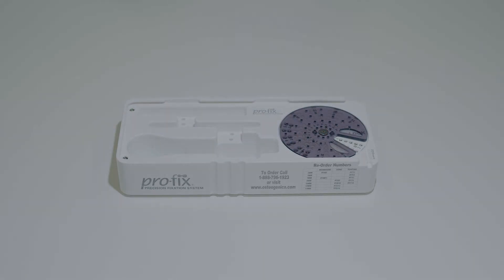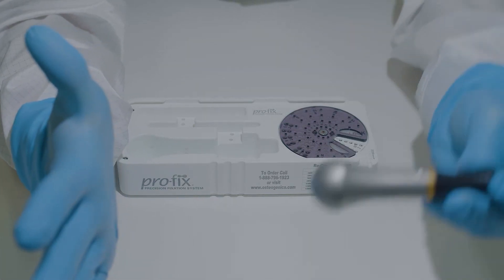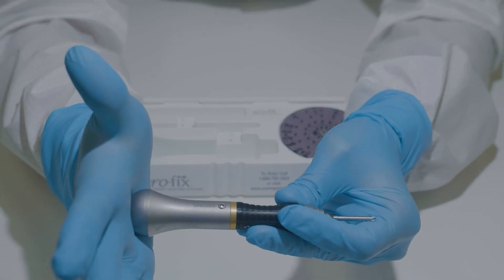Considering this is a friction fit, it is important to get a secure connection between the blade and the screws. In order to do so, place the ball of the handle into the palm of your hand.